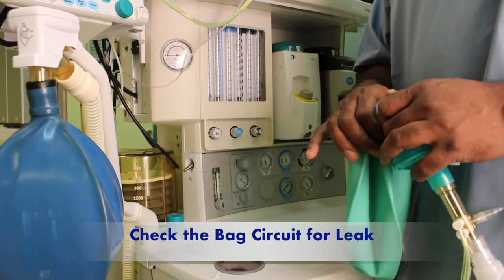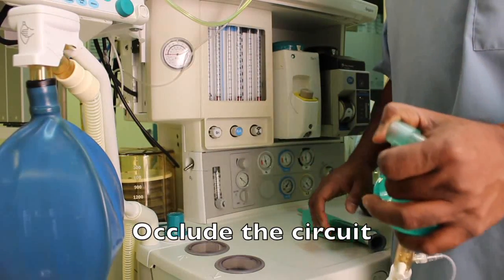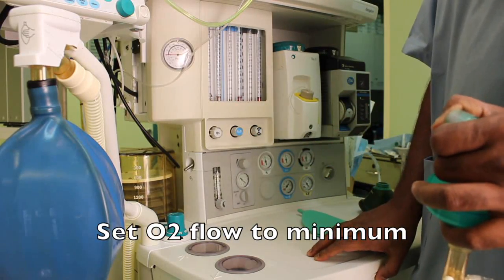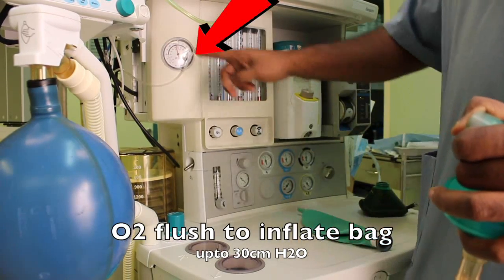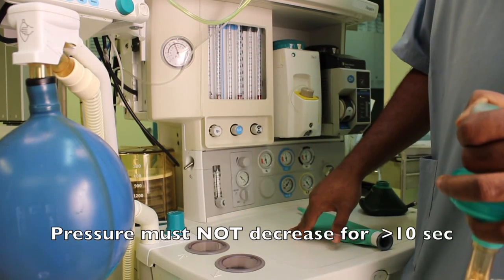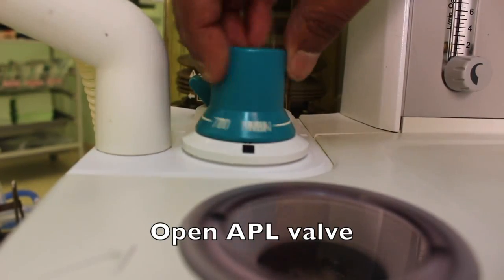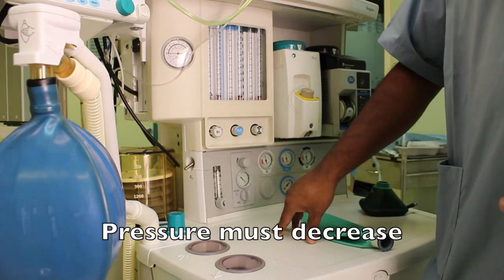To test the bag circuit for leak: remove the test lung, occlude the patient end of the circuit, close the APL valve, and using minimum oxygen flows and the oxygen flush, pressurize the circuit to around 30 cm of water. See that it is retained for at least 10 seconds. After 10 seconds, open the APL valve and see that the pressure monitored on the gauge goes back to zero.